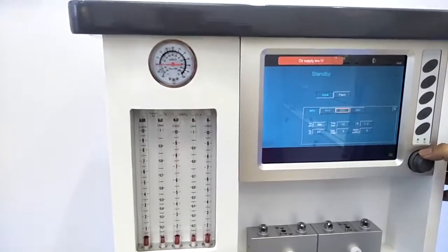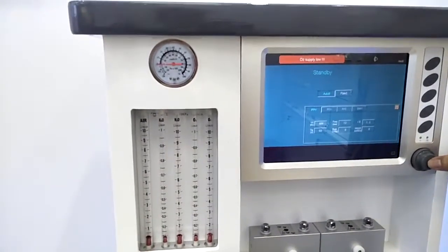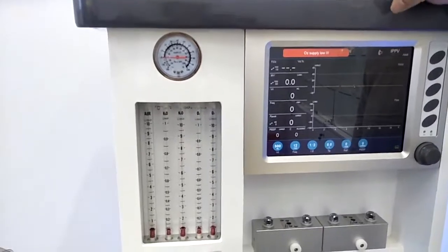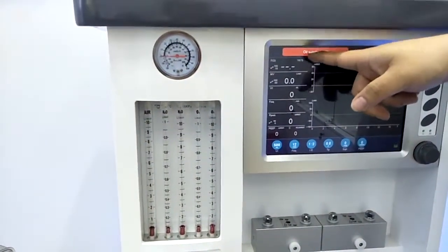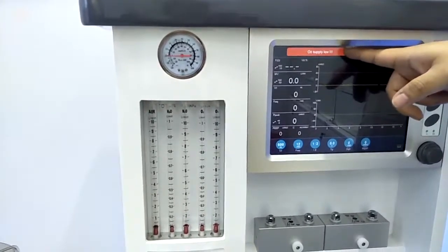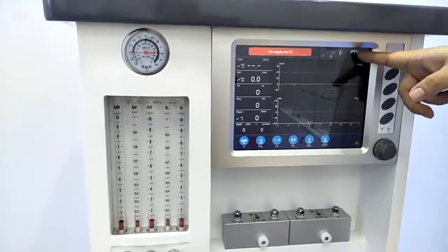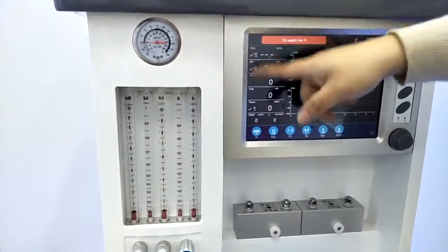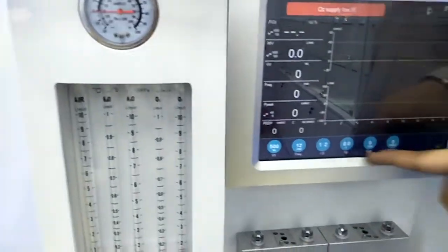Once we set all the parameters, we just move to here and press the rotate button again. Then we will get into the main interface. Under the main interface, we have four parts. The above side is the alarming area, with red and yellow colors for the alarms, and also different frequencies of the sound. And here is the ventilation mode we are choosing now, and it will show for adult use or children use. The left side here is the monitoring parameters, and the below side is the adjusting parameters.